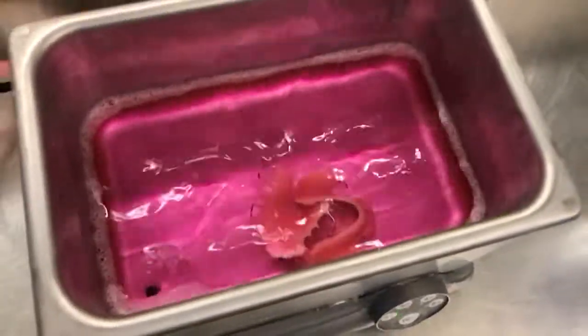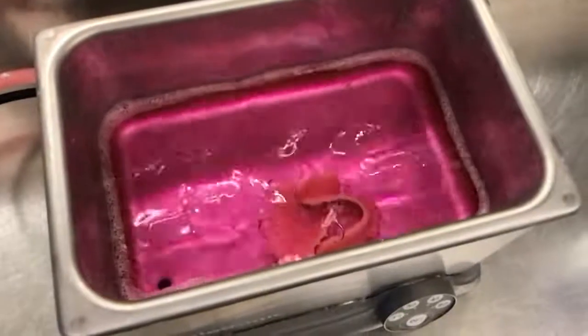Once I do that, a little bit of rough trimming, and then ready to retrofit all the duplicate casts.